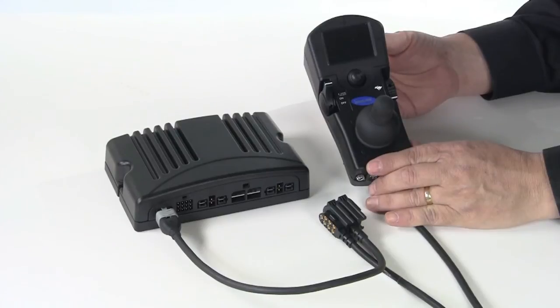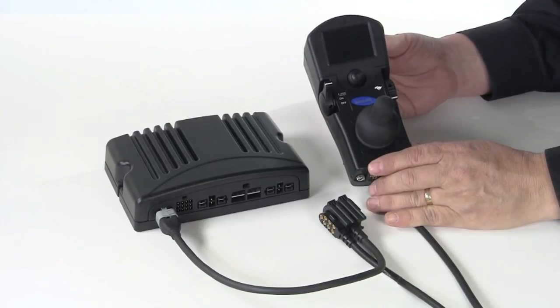Programming is required when upgrading to an expandable system. For details on the programming required, please see the video titled 'Adding an MPJ to the Power Wheelchair.' In conclusion, we hope you found this brief introduction to power wheelchair controllers helpful.